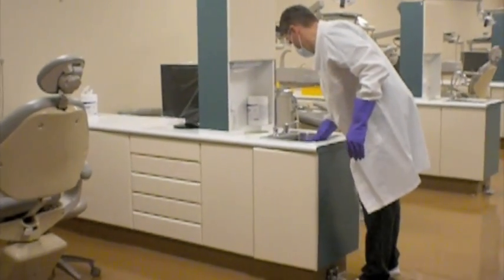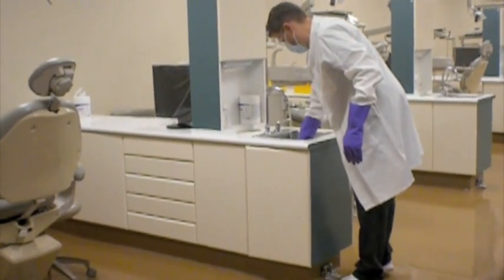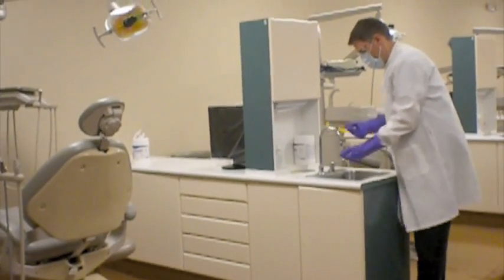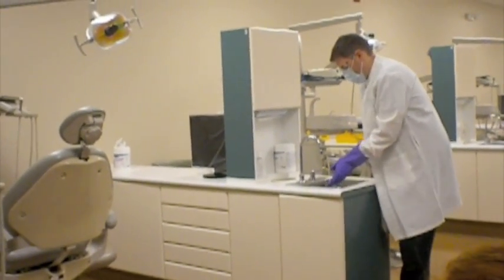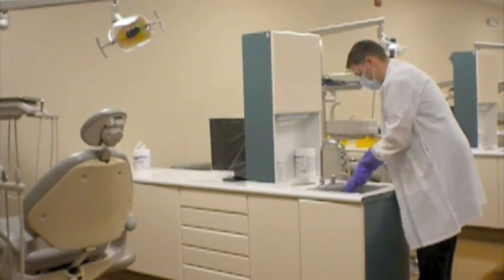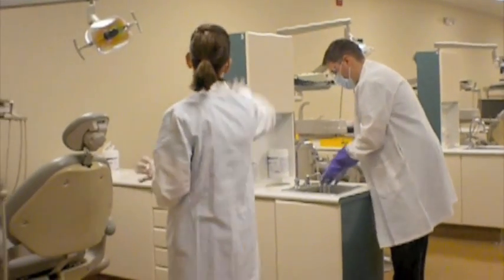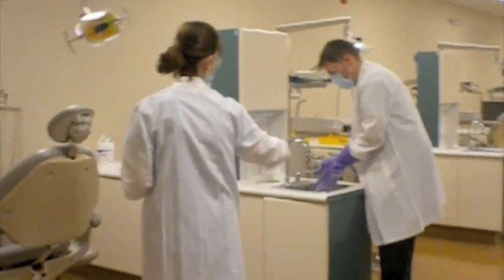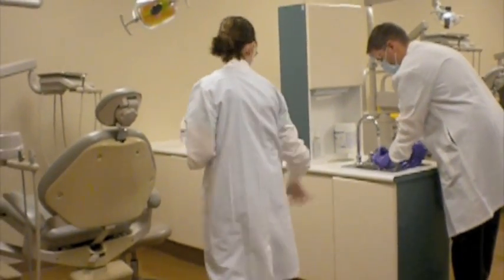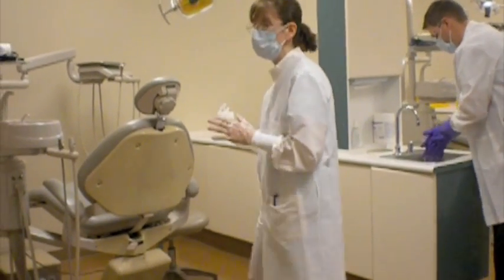And once he finishes in the sink, he's going to wash his gloves because, again, a more highly contaminated area, and prior to moving to the remainder of the top surfaces, he wants to have clean utility gloves. Okay? So you've worked on your top area. So what we were just talking about in terms of what you own. You own everything to the right. So the sink area, the front of the sink, the top of this countertop, everything down to the inside here, drawers that we'll show you in a bit that can be opened.